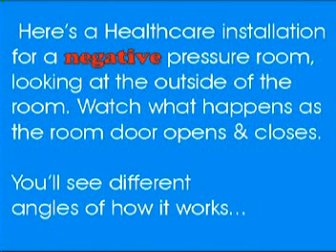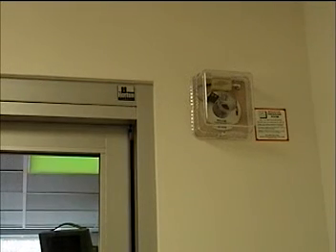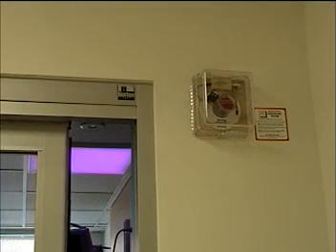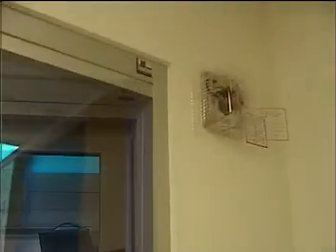Let's look at a negative isolation room and see how the Visual Plus alarm unit operates. Here's a negative infectious isolation room for a hospital. In the upper right corner you can see the alarm unit with the photo eye assembly. A closer look shows that when the door is closed, the ball is on the other side. As you open the door, the ball falls out, goes in front of the photo eye, but an alarm isn't sounded because of a time delay relay. When the door is closed, the ball is drawn back in and the alarm is reset.